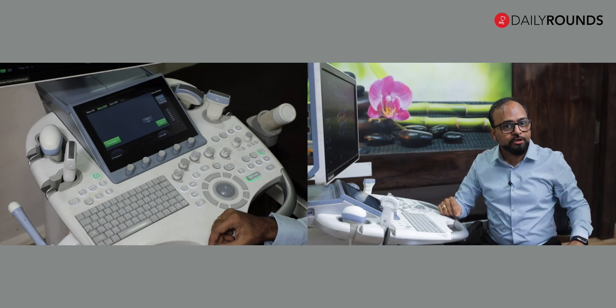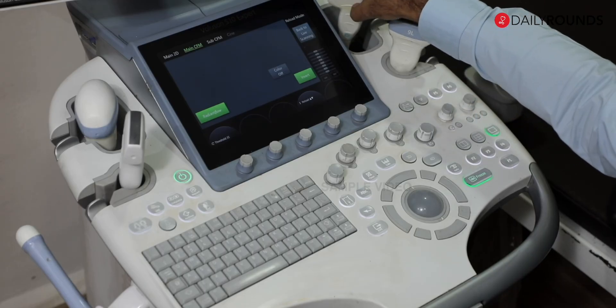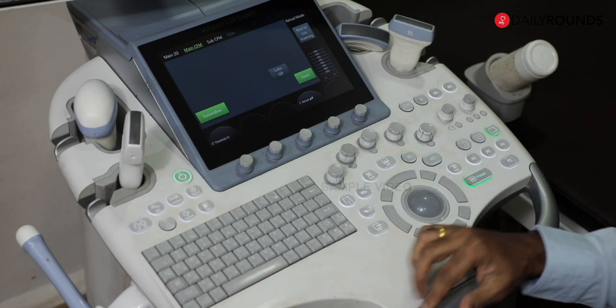Then we come to the most important part of the machine — the probes. As you can see here, this particular machine has one, two, three, four, and five probes attached. There can be different types and different numbers of probes available with your machine. We are going to discuss each of these probes in detail including their indications. These probes have a wired attachment — basically an optical fiber — connected to the probe slots on the machine. It is worthwhile to note how many probe attachment slots your machine has, as you may need to swap probes if slots are fewer than available probes.